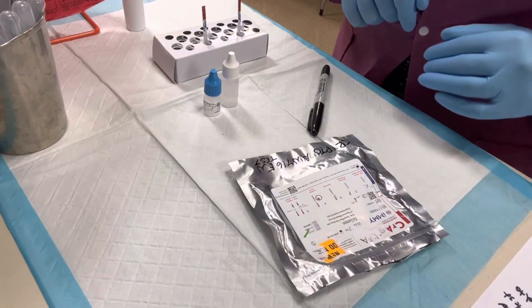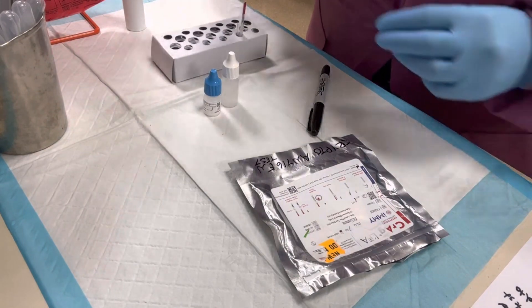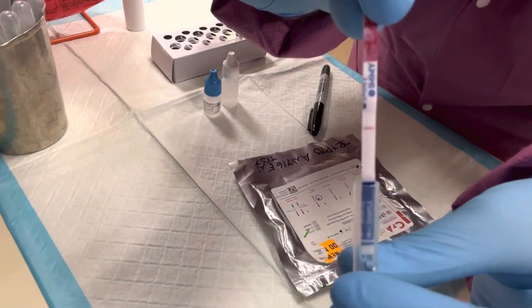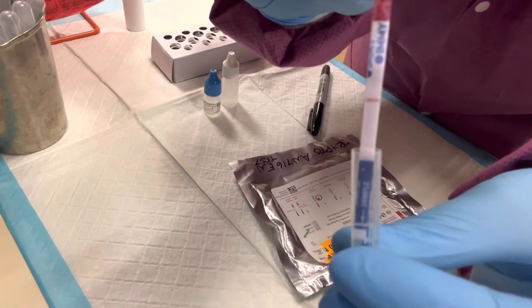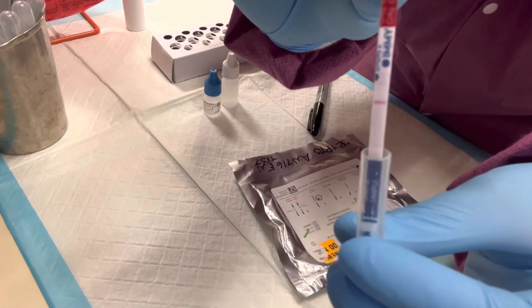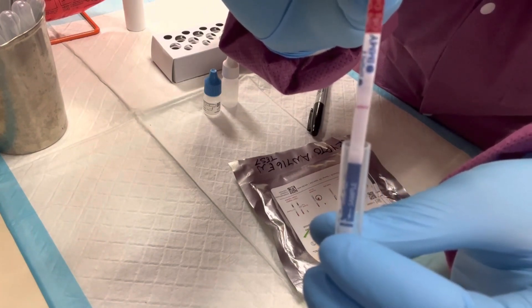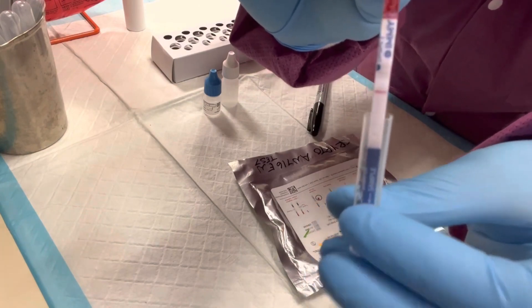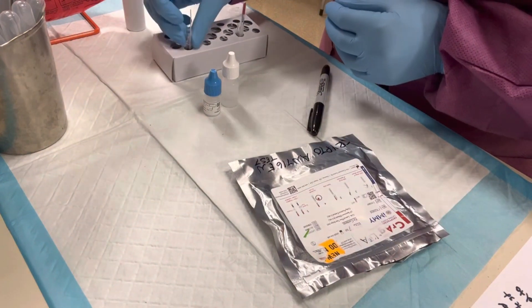It's been 10 minutes for our Cryptococcus antigen testing, so let's take a look at the results. This was my negative control — we have one line in the control window, not two lines, which means it's negative. If we had no lines at all, that would be an invalid test, because the control line needs to be present no matter what. So this is a negative result.